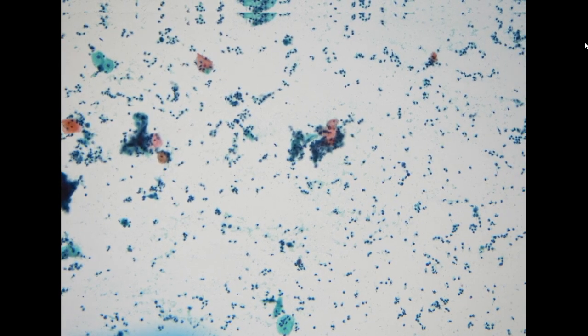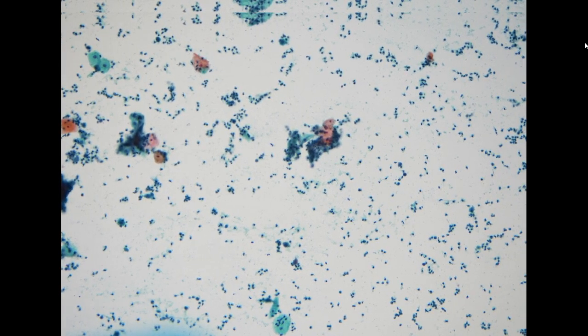So the next specimen is coming from a 75-year-old female, and she already had a past history from an outside hospital of a possible endometrial cancer, with total hysterectomy. She has been followed up in the hospital for more than one year, and this is not the first specimen that we receive. At these times, the smear is actually not a cervical smear but a vagina smear. So the purpose of the specimen is for surveillance of the disease.